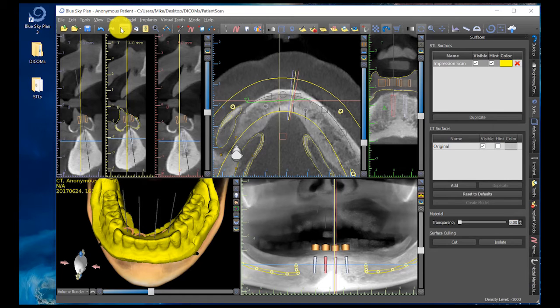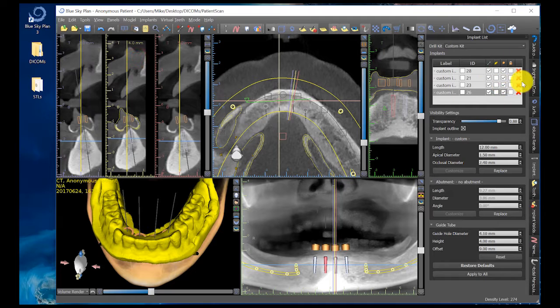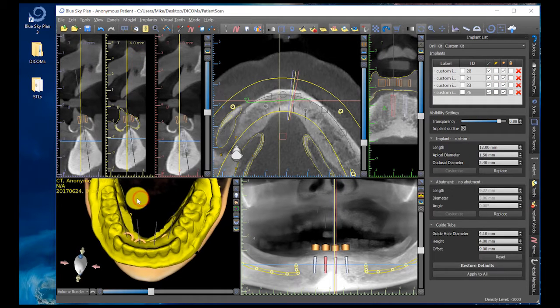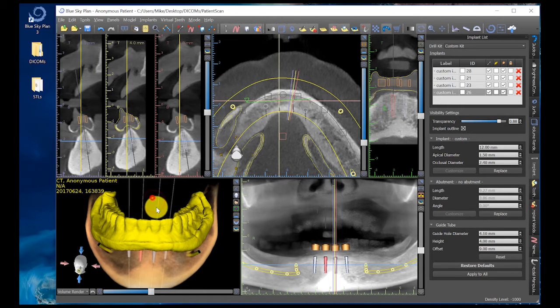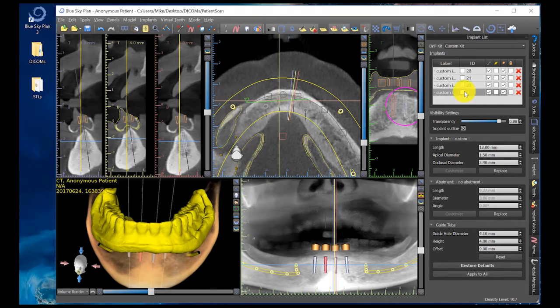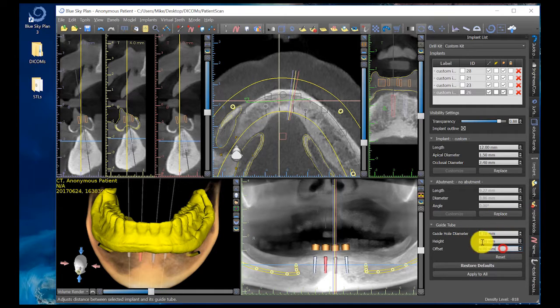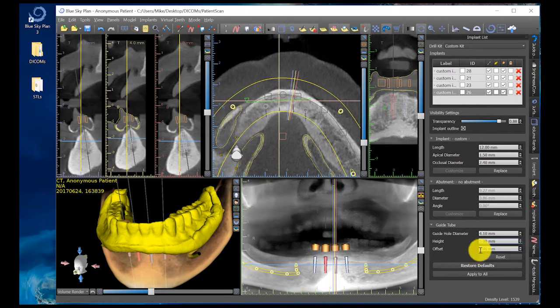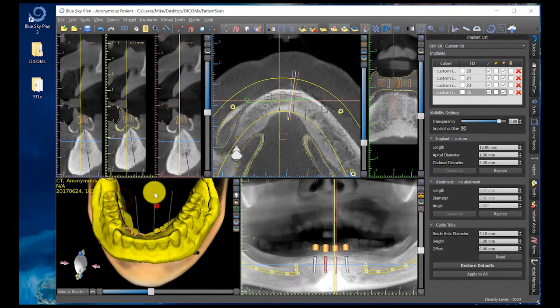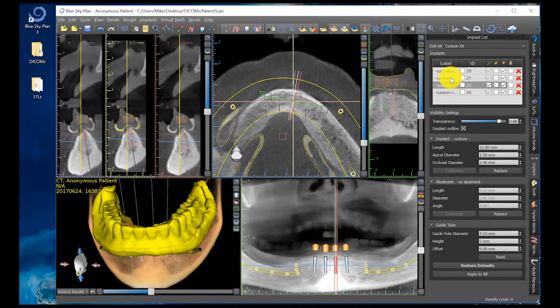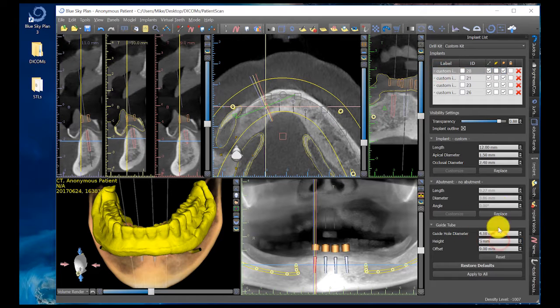Before surgical guide fabrication, I want to make sure I can see the outline of my implants properly within bone at the right angulation for where the prosthetics are going to be. I click on Panels, Implant List. Now my implants are all properly planned out. I set parameters for the Lodi surgical guide approach — click on Custom Kit. Make sure Mode, Advanced, and Digital Surgical Guides are selected. I have a 12.0 millimeter implant with a 2.4 millimeter occlusal diameter. I set my guide hole diameters to 4.1 and my height to 5 millimeters. I repeat that for all implants, then click the lock button to lock them all down.